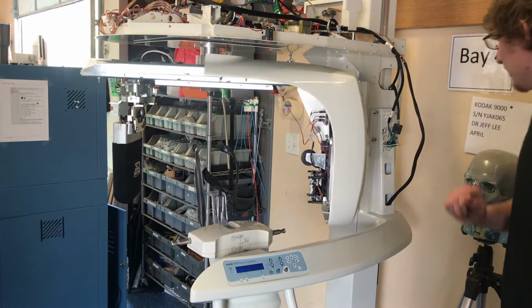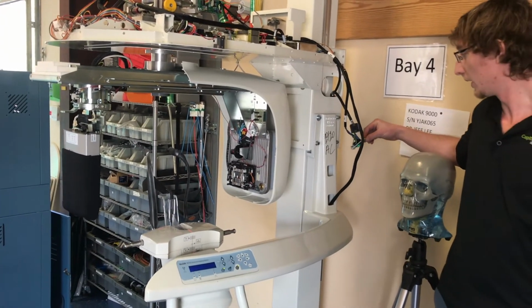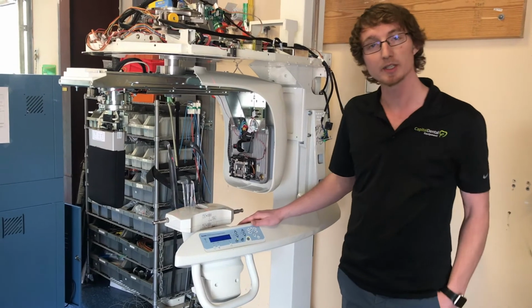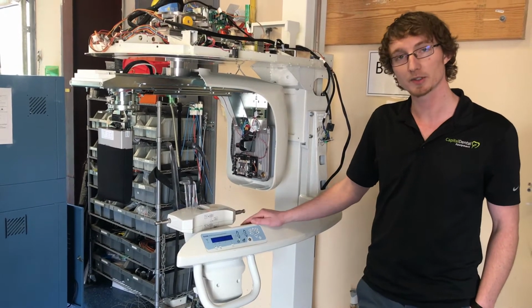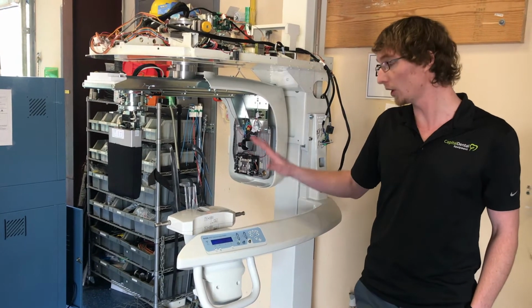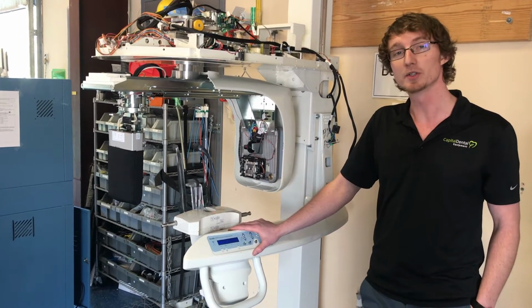The last thing we have is our power button for the overall unit. It is recommended to power the unit on at the beginning of a workday and power the unit off after the end of every workday. I would also recommend powering the overall unit off on the weekends. So now we'll move over to software.